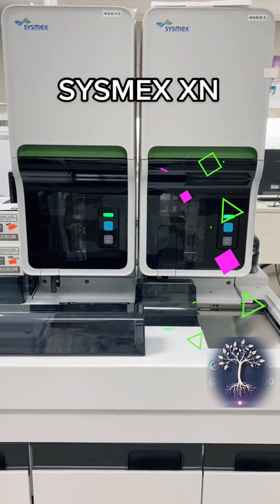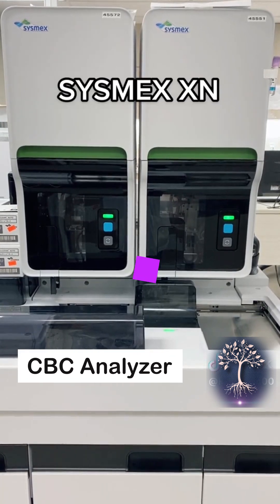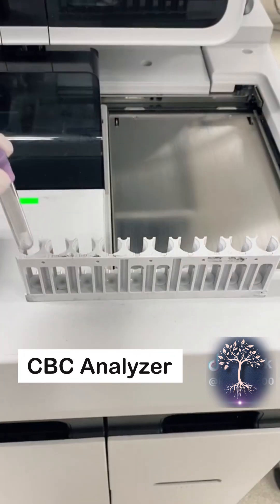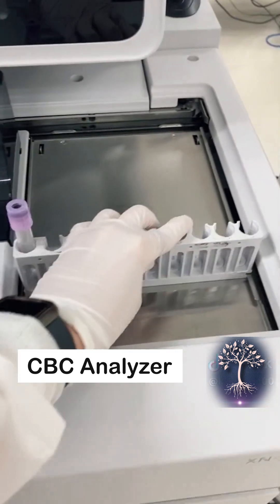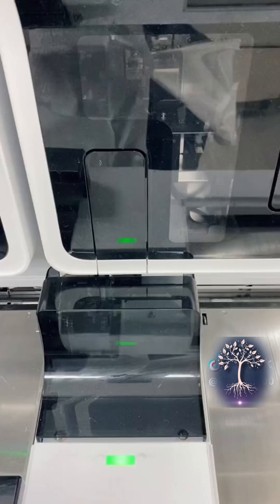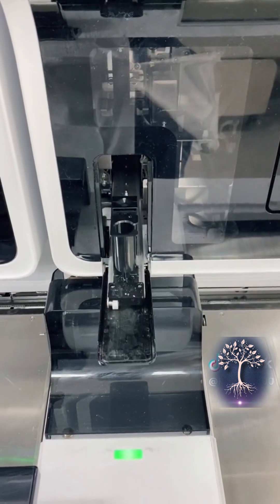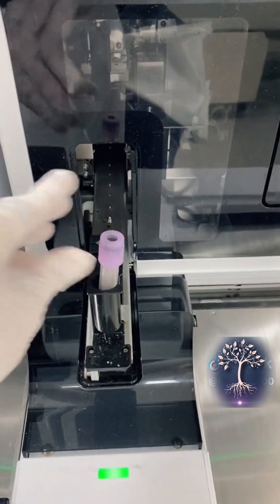These are our CBC analyzers. They are Sysmex XNs — there's one on the left, one on the right. They do the same thing; we just have two because we are a higher volume lab. You can either load the tubes all together or you can run them one by one. It's just faster to run them all together in the rack.